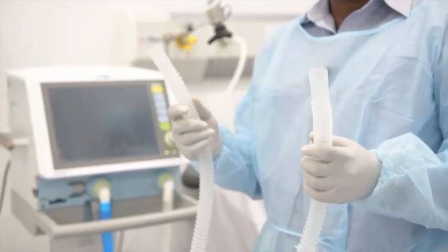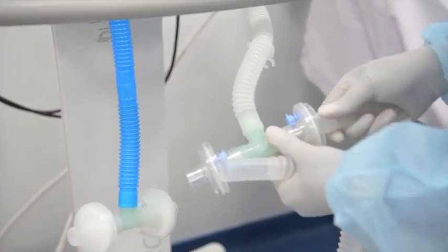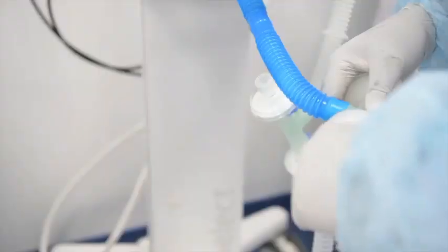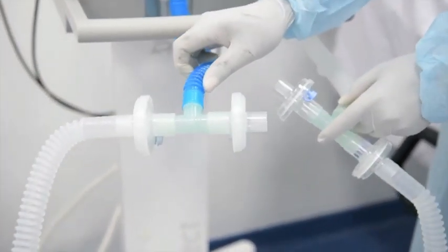Similarly, you connect on the vent in that modality. So for one patient, one circuit will go to inspiration circuits and the other arm will go for exhalation circuits.